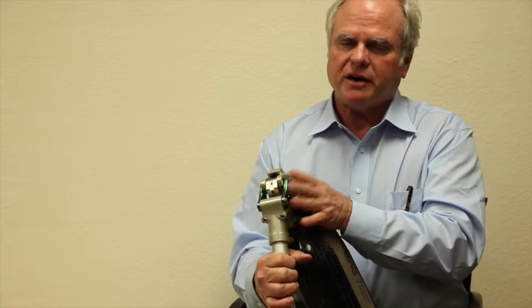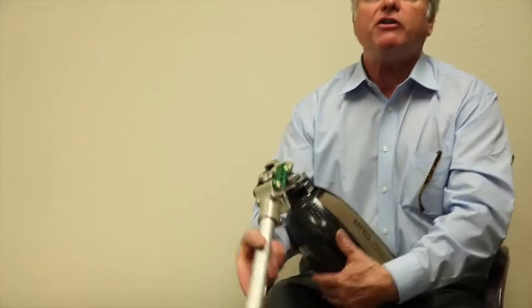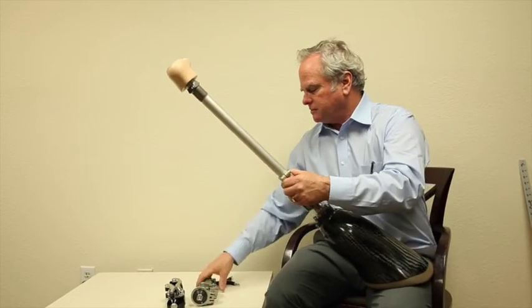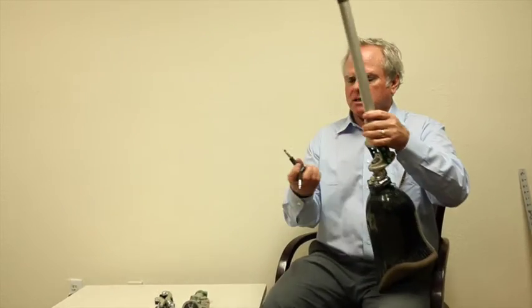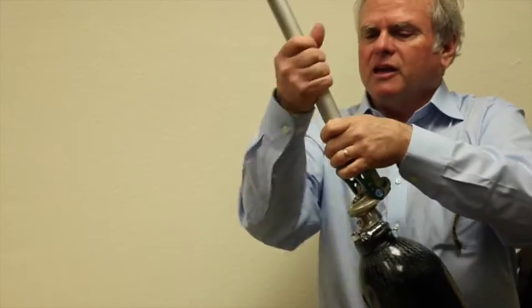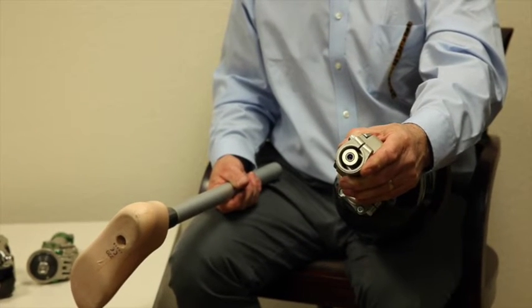But pretty much very simple, you have one more adjustment and that's extension assist. How hard do you want this to kick out? How much strength you want and that is adjusted right here in the bottom. So this can be tuned to how much extension assist you want to have on the patient.